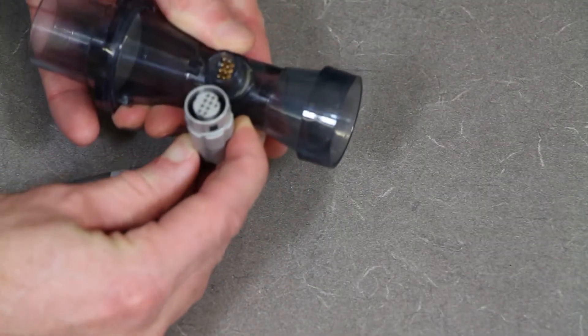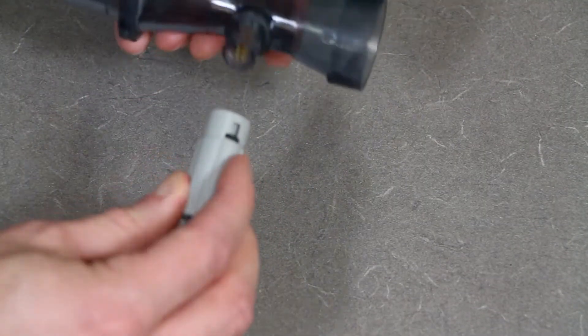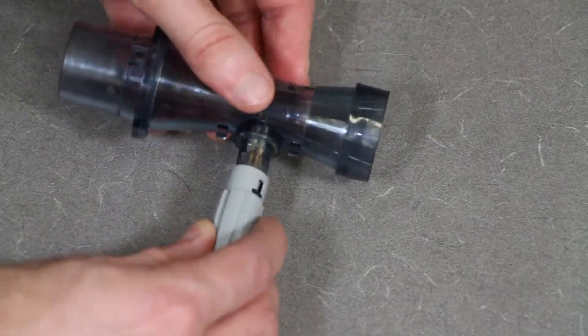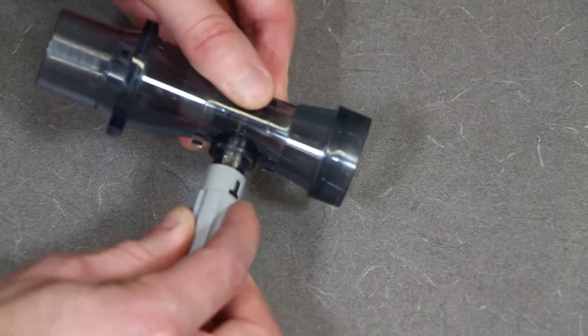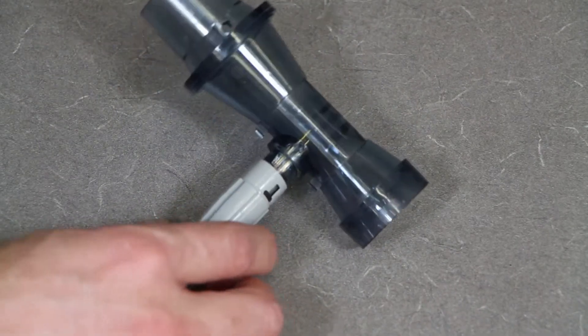Make sure that you line it up appropriately. There's only one direction that it goes in correctly without misaligning any of the pins, so be very careful that you're aligning the pins properly. Put that in until it clicks.